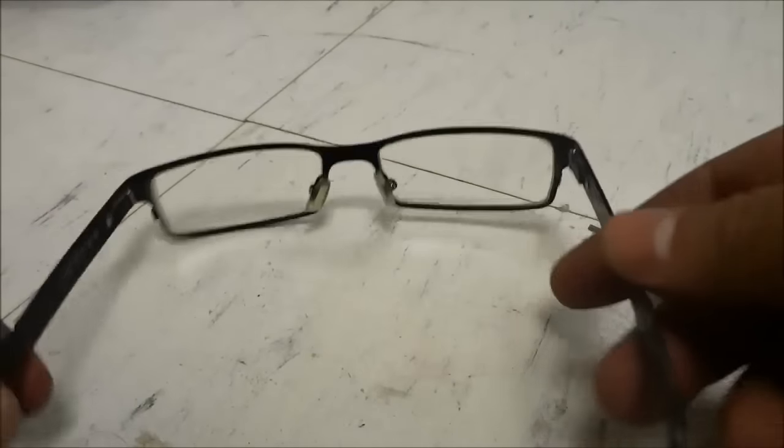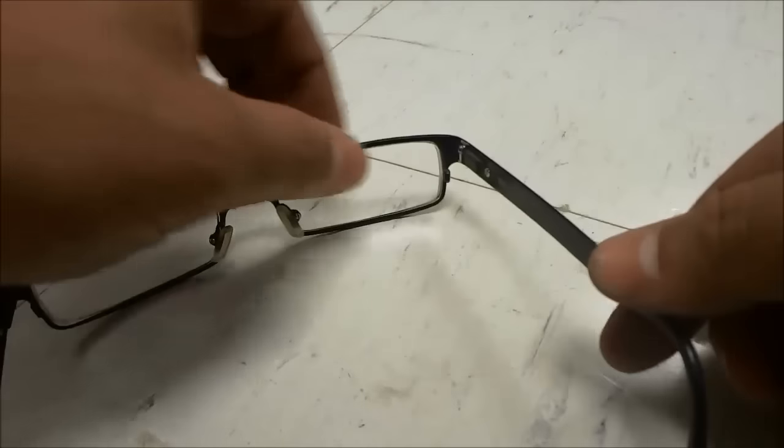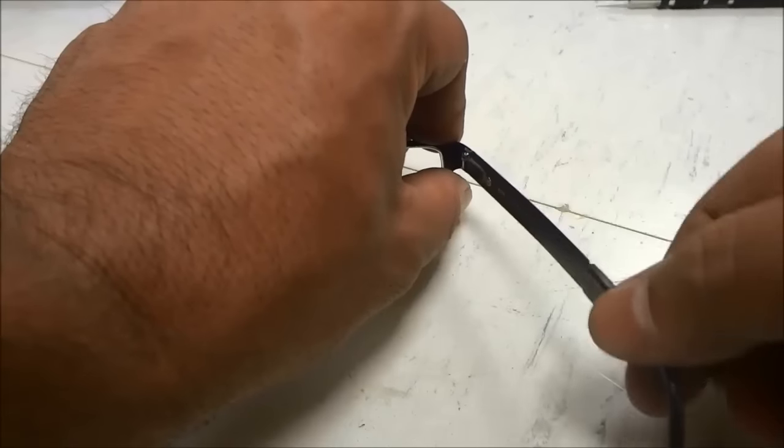As you can see right here, I have a pair of eyeglasses and the right arm of the eyeglasses is loose. You can see that it is loose as I move it like that.